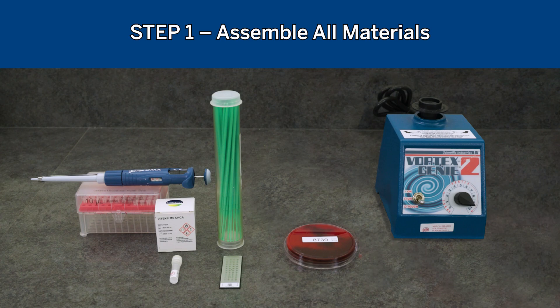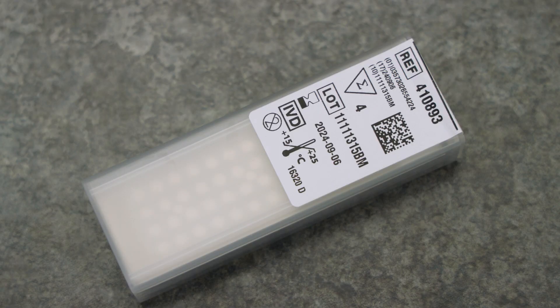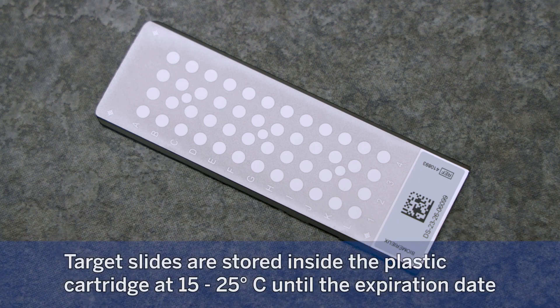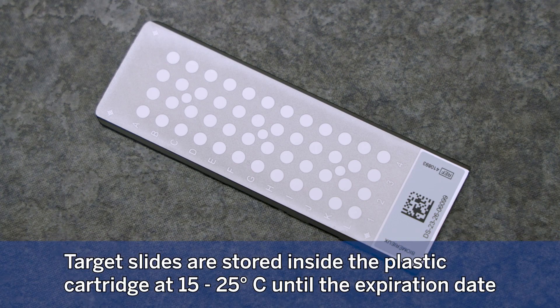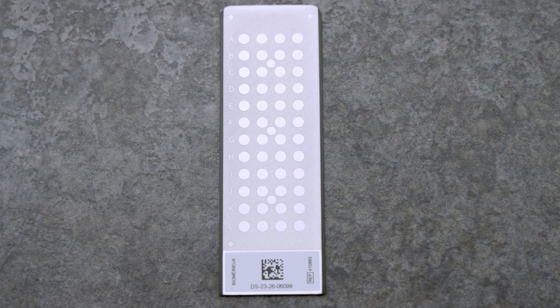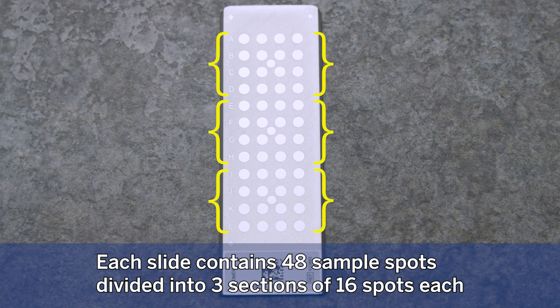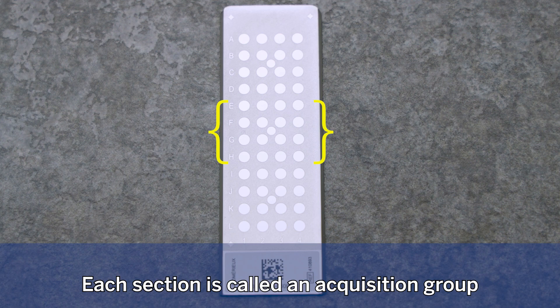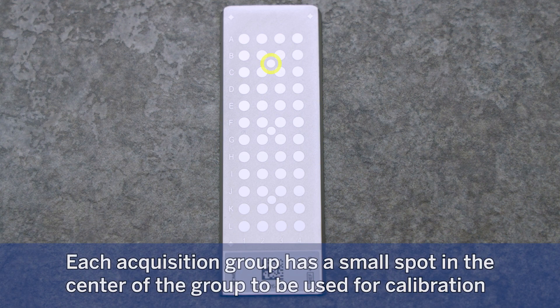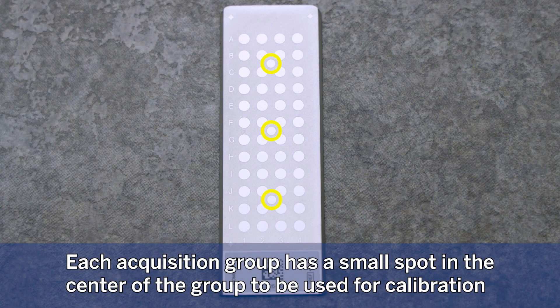Step 1: Assemble all materials. Vitek-MS DS target slides are stored inside the plastic cartridge at 15 to 25 degrees Celsius until the expiration date. Each slide contains 48 sample spots divided into 3 sections of 16 spots each. Each section is called an acquisition group, and each acquisition group has a small spot in the center to be used for calibration.